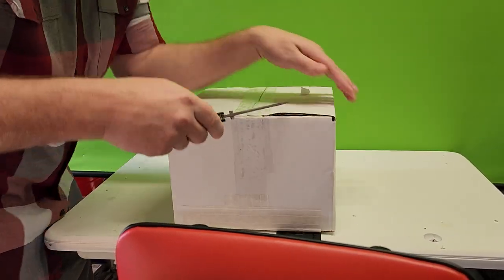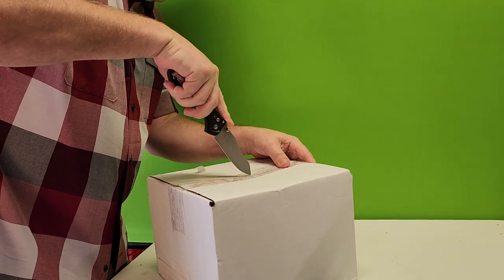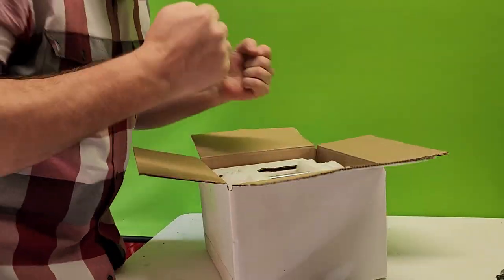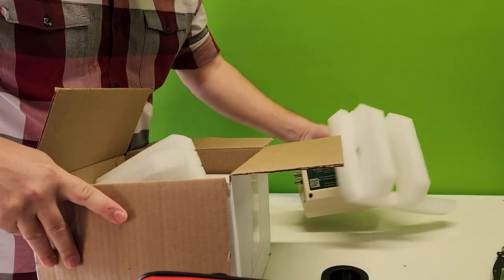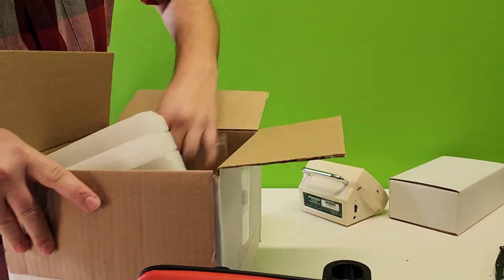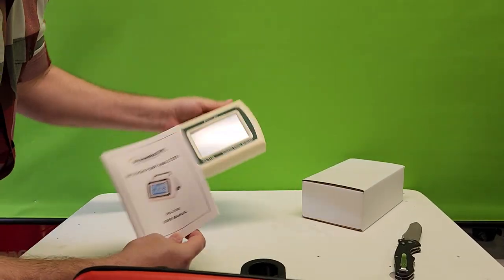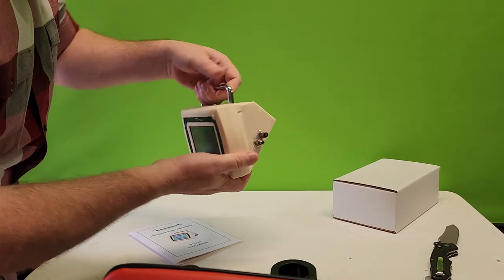Here we go - got that side, got that side. If I remember correctly, the IPA 3100 is a new - yes! Oh my god, yes! It's so fantastic, and a little manual! Oh my god, guys, I love it. So this is the infusion pump analyzer IPA 3100, single channel. Take a look at that - this is the finished product!